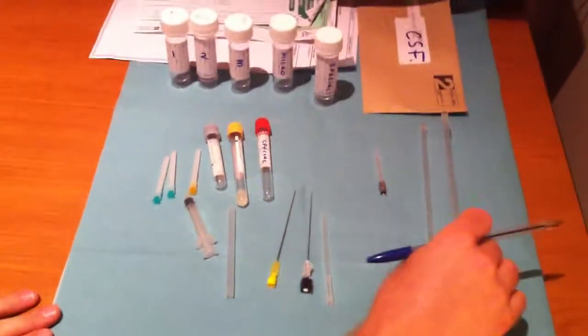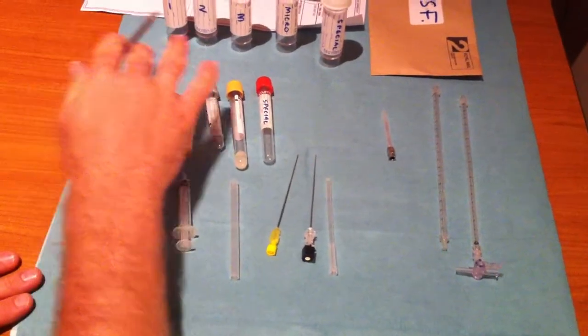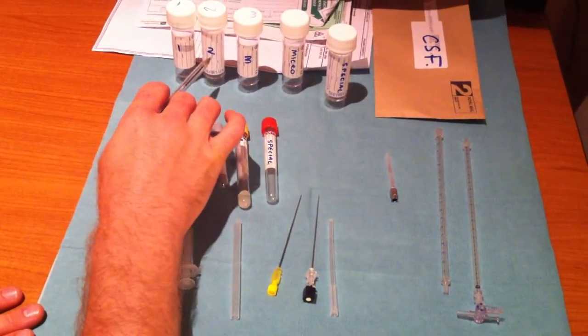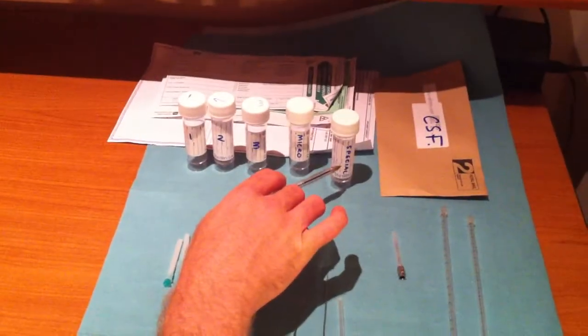I'd just like to talk you through the equipment for lumbar puncture. Your specimen bottles which you can number for spectrophotometry or label for microbiology or any special sampling.